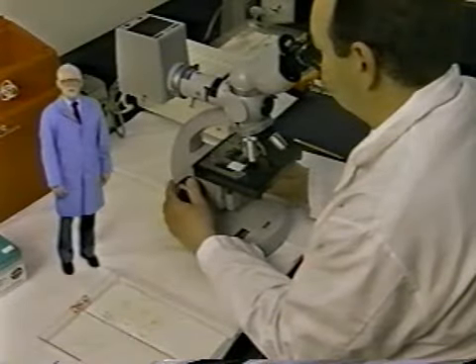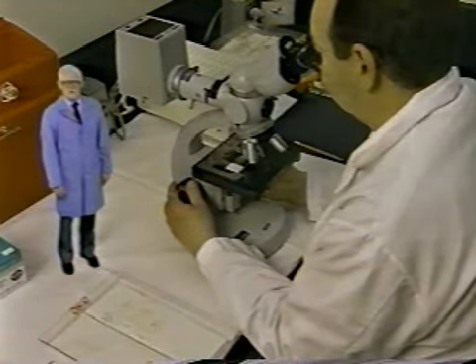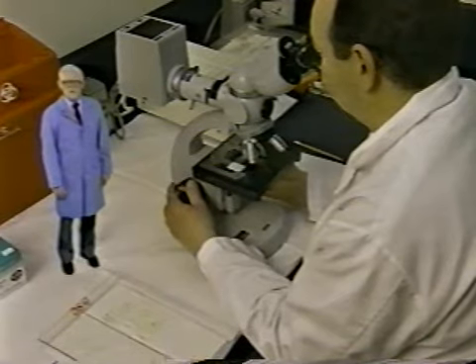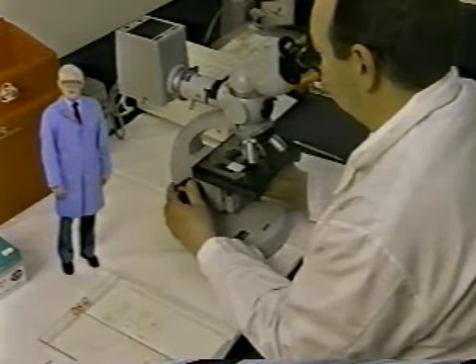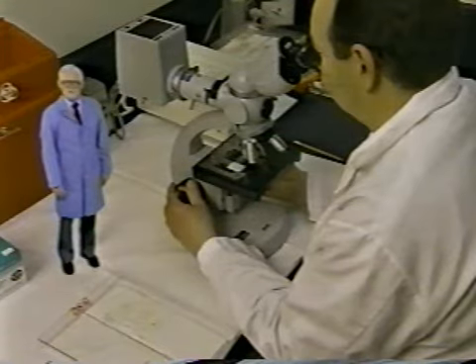The daily use of both positive and negative control smears should detect reagent contamination and ensure that the stain is working properly. A false negative report on a smear could be just as detrimental to the patient, if not more so, than a false positive report.